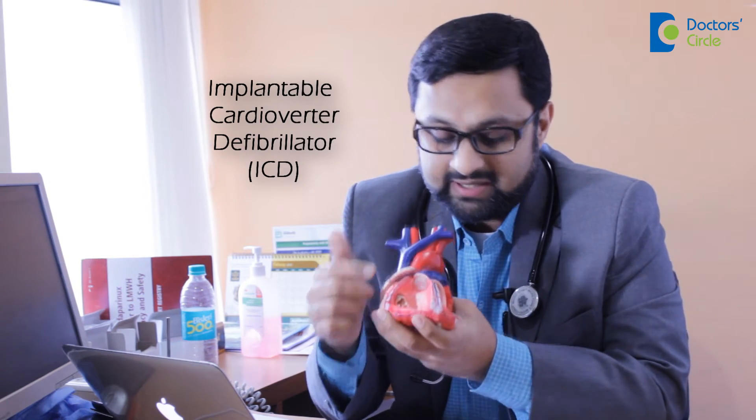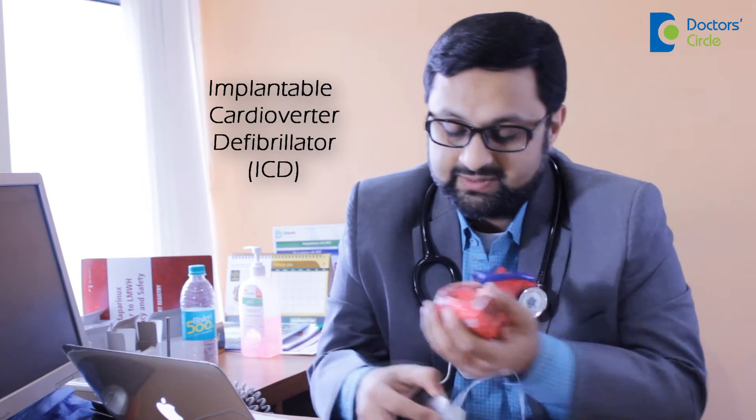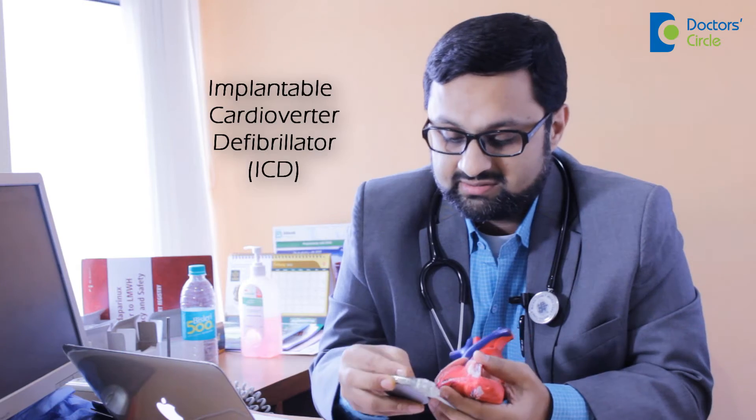We implant a pacemaker which is this size, and a lead which goes here and monitors. This lead stays in the ventricle and keeps monitoring the heart rhythm regularly, every second, every beat.